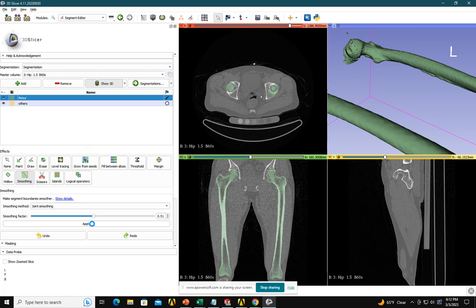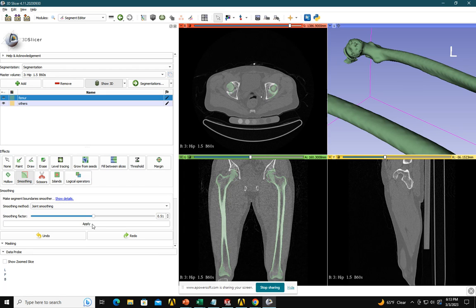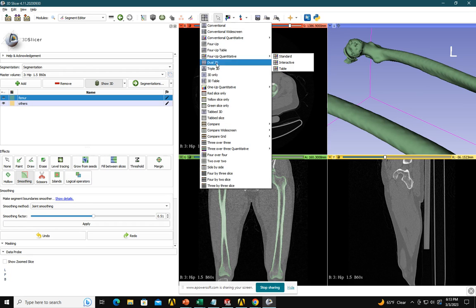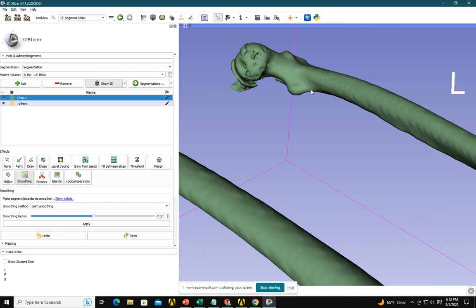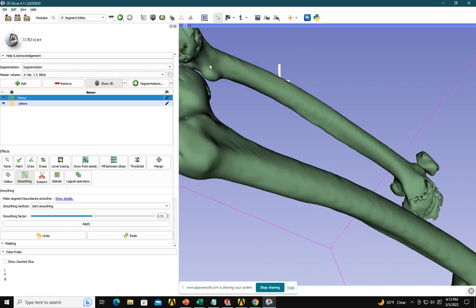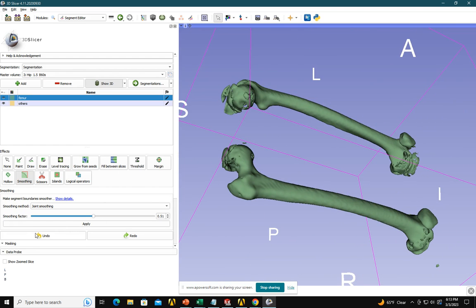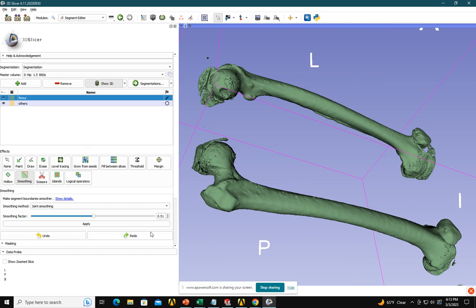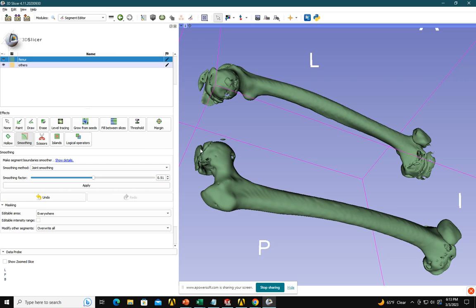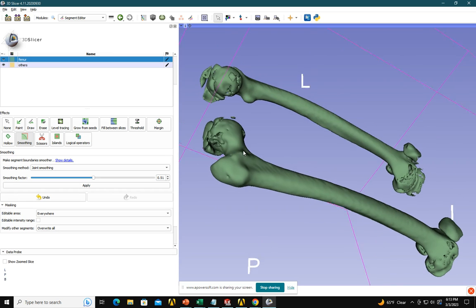From this software we can get a 3D model from any image — even if you take the cross-section as a JPEG and import it here, it can get the 3D model. Not only DICOM — even PNG and JPEG are supported. A little bit of smoothing is done — you can see it's a bit smoother. This is undoing/unsmoothed, and this is smoother. You have to fix the remaining parts by going layer by layer, which takes time.